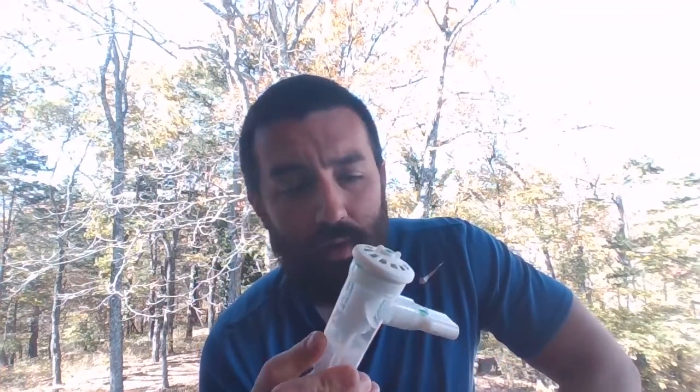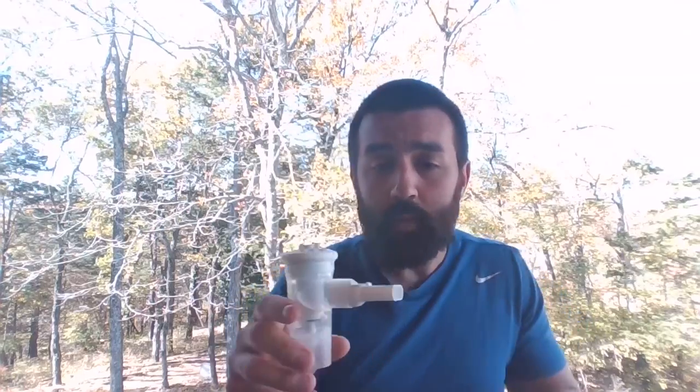So some people would be like, well, why would I spend extra money on these if I was going to do this with a mask treatment? That's stupid. Well, no, it's not. It's still a good nebulizer, good respirable dose. And sometimes this is all you have, okay? Now, running this with a mask is very, very tricky.